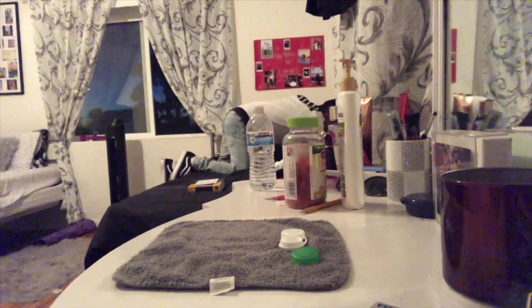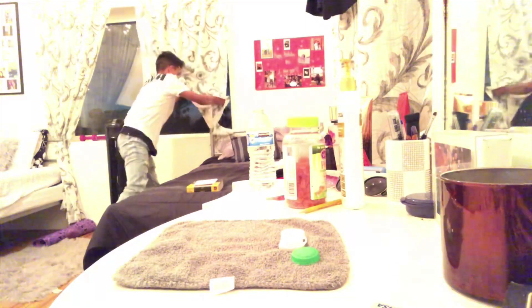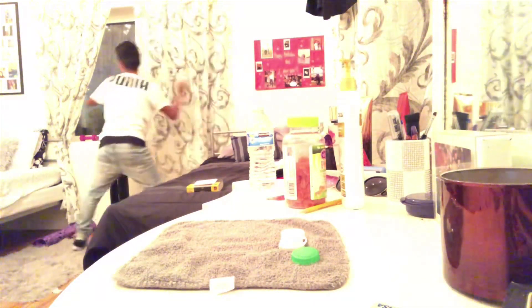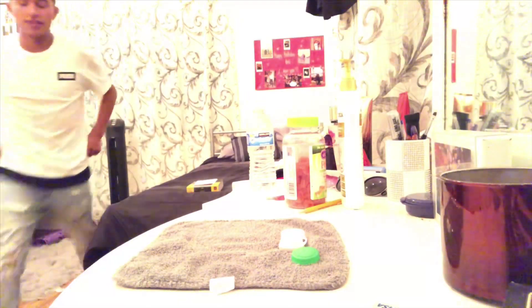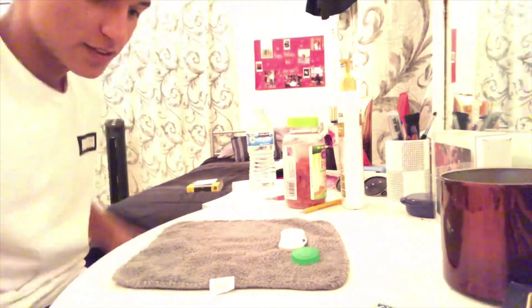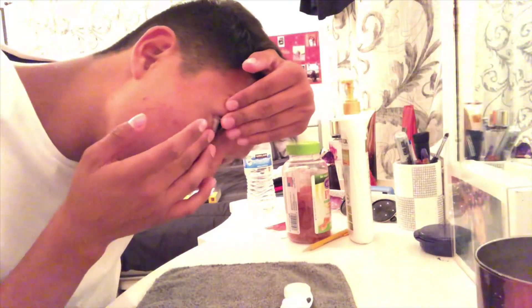It's too dark here, let me try to fix that. Hopefully that made it much better. So let's get to it — I want you to see how I do it. I usually just face down, I grab this one like this, and I get it with the middle finger.